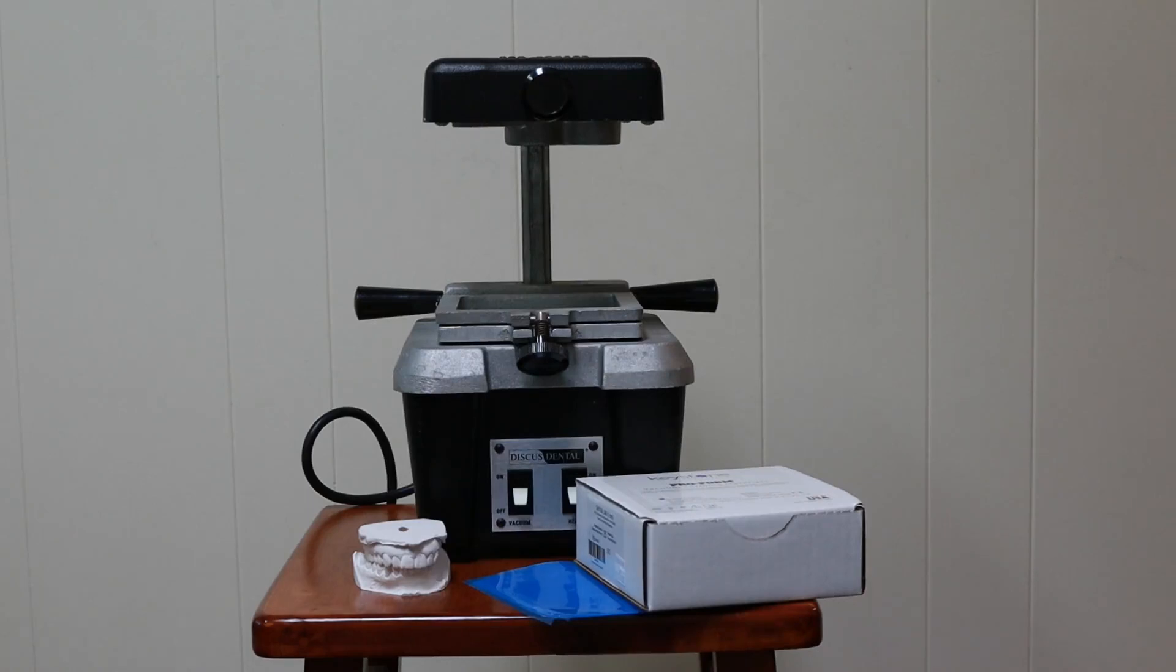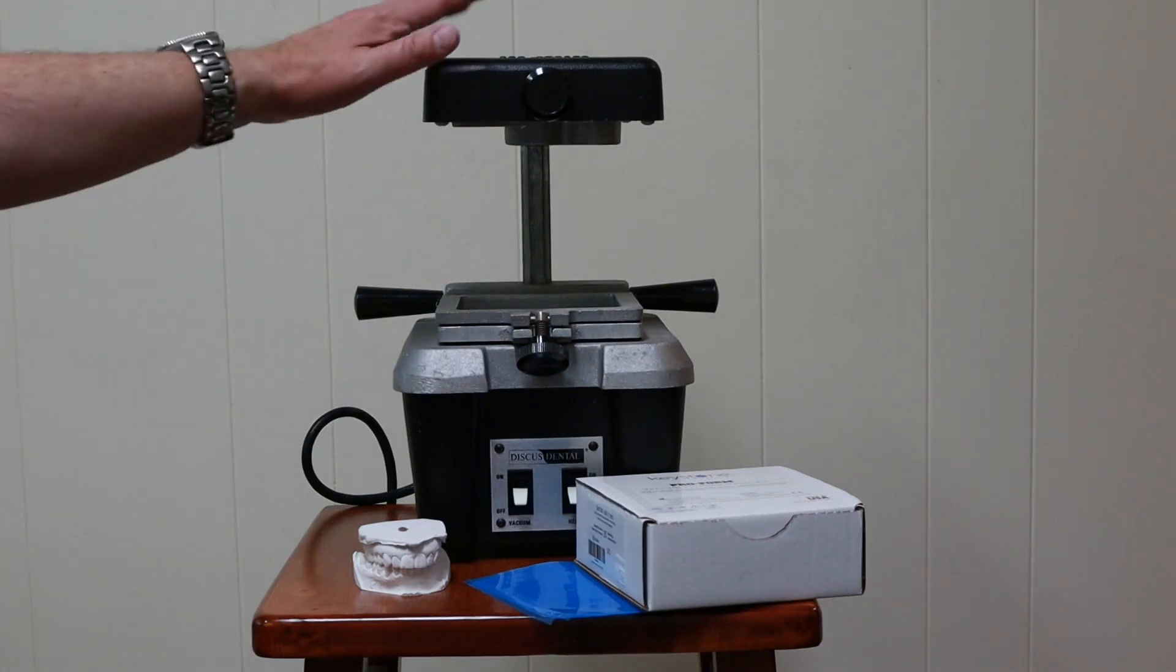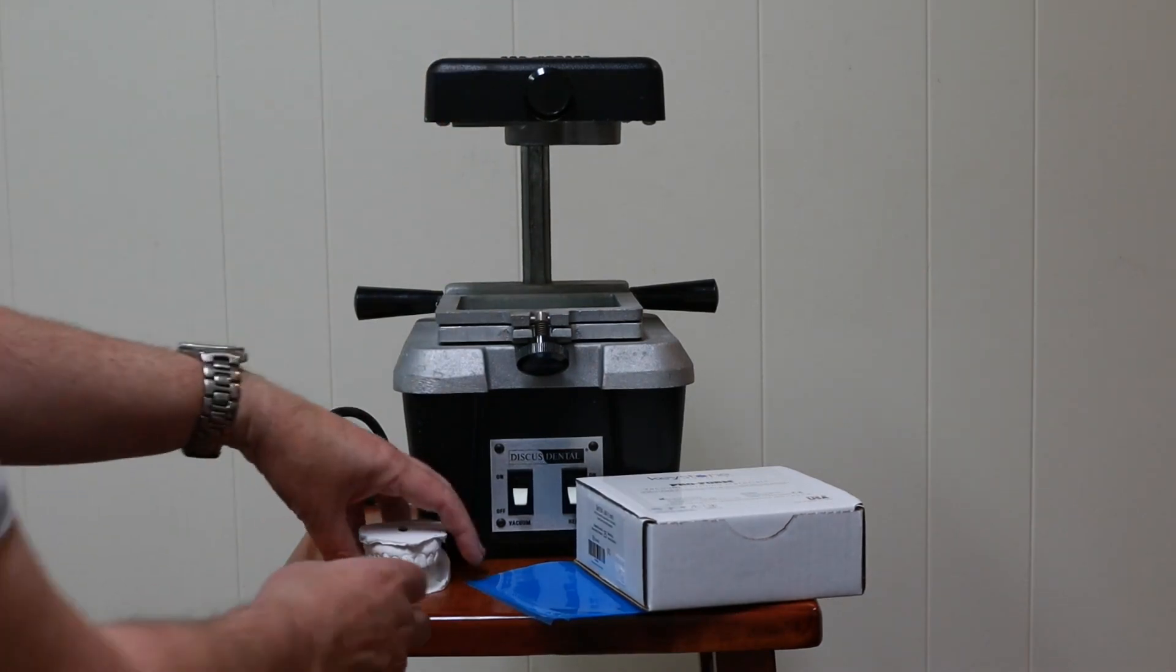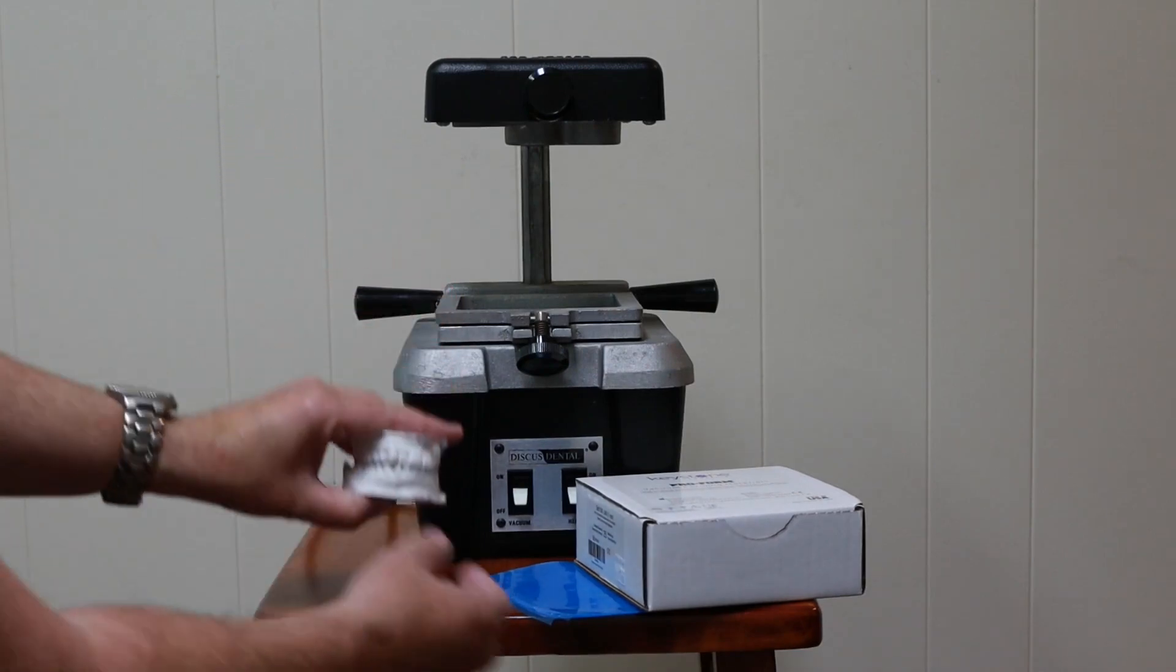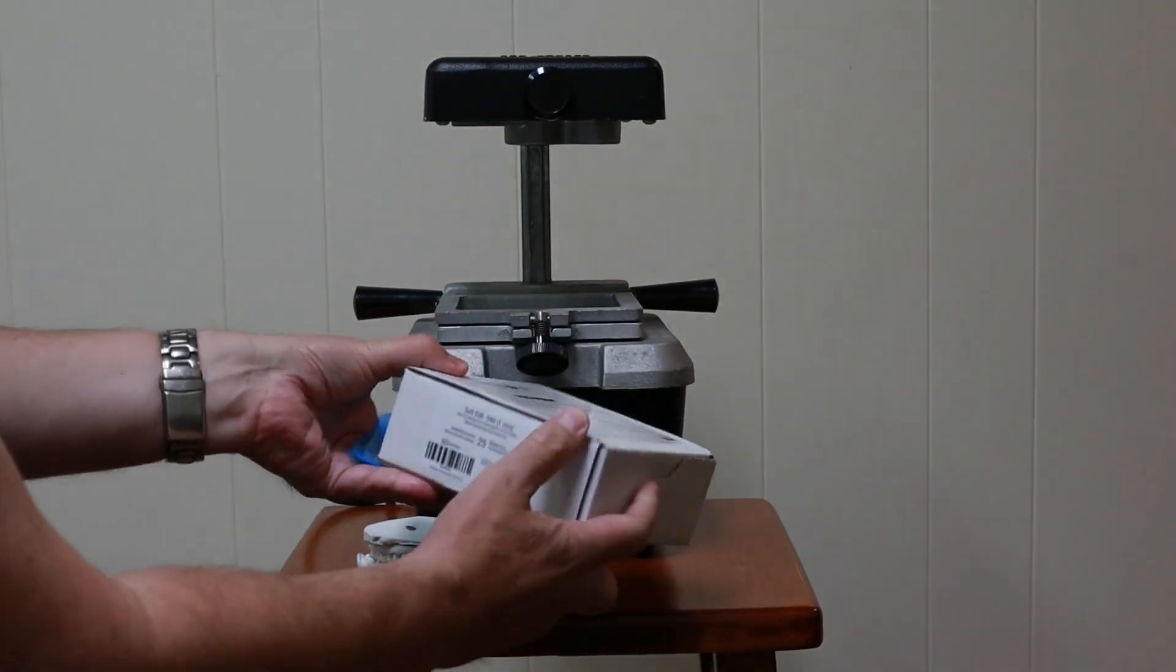Hi Danil fans, Dr. Rich here. In today's video, I'm going to show you how I make bleaching trays using my vacuum forming machine, stone models with a person's mouth, and the vacuum forming material.